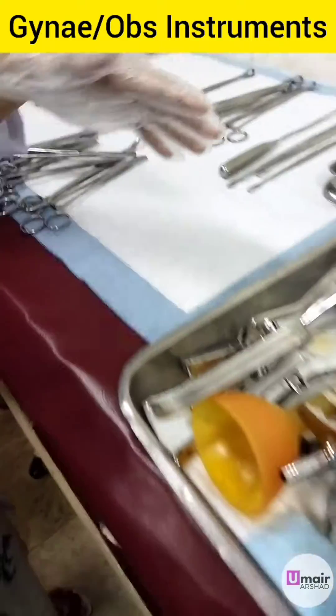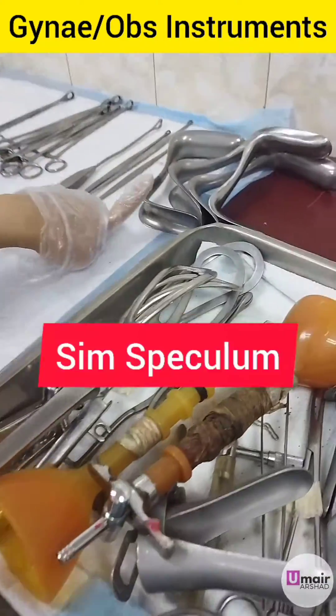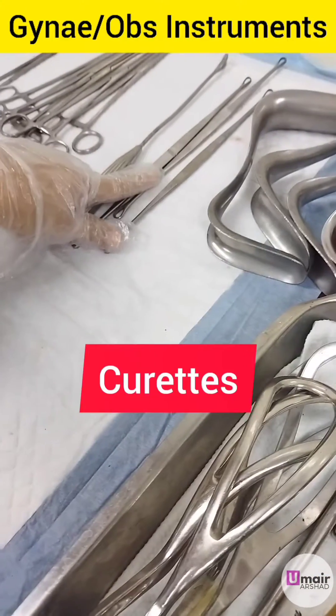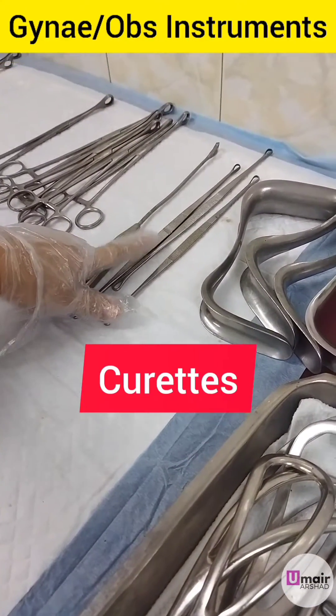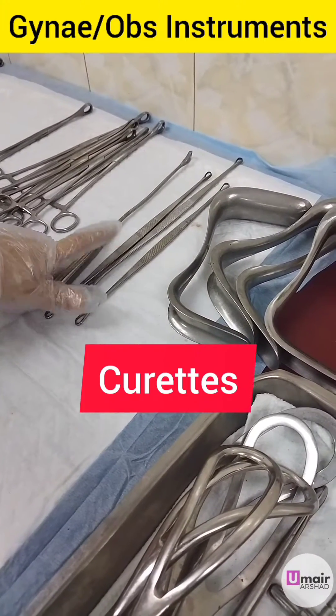This is used for retracting the vaginal wall. These are different sizes of curettes for curettage of the endometrial cavity.